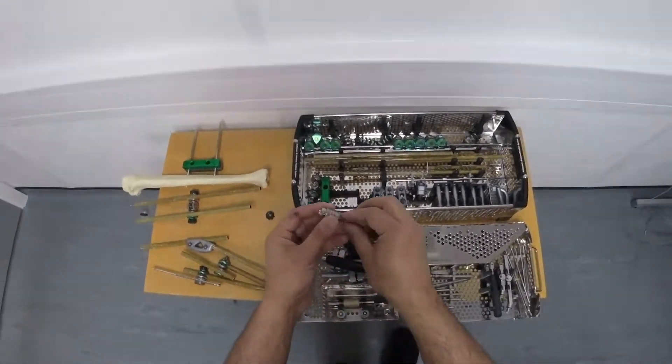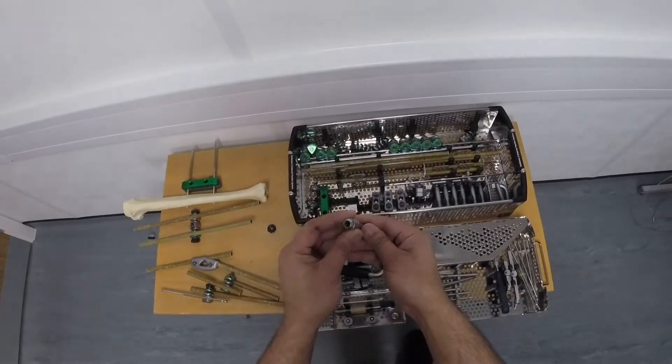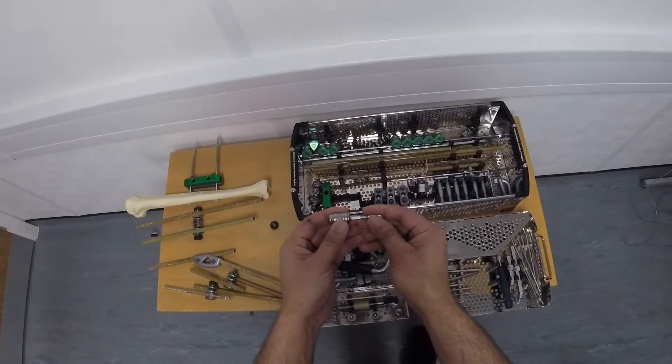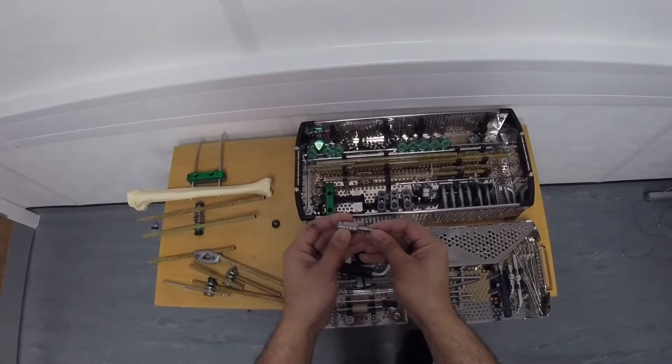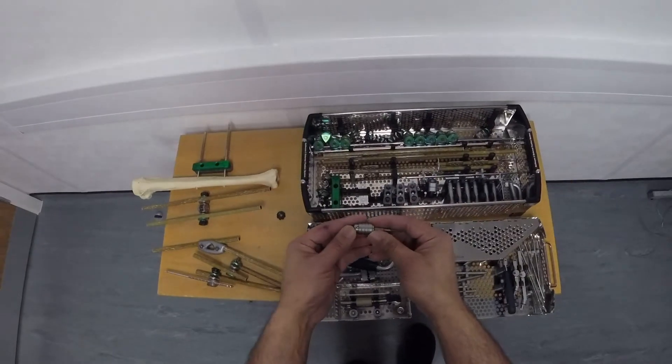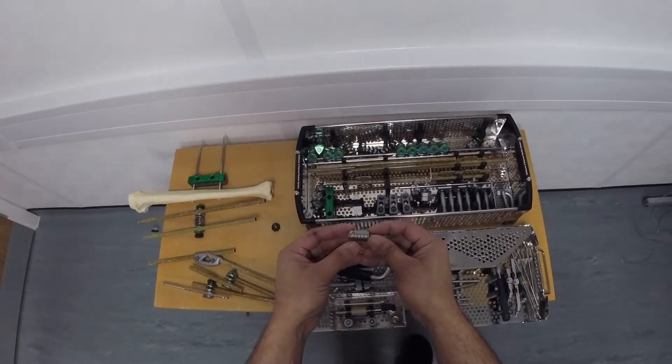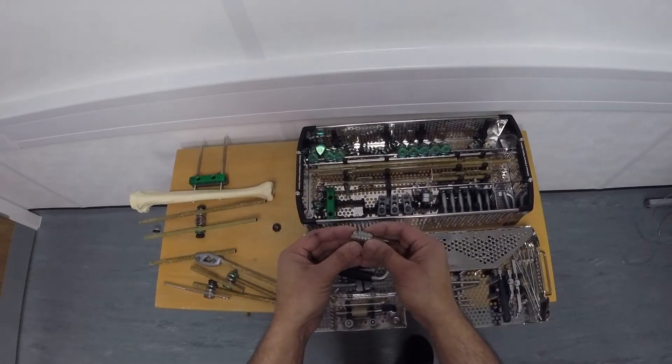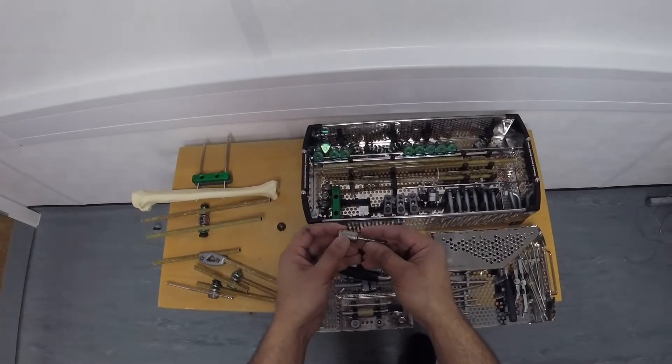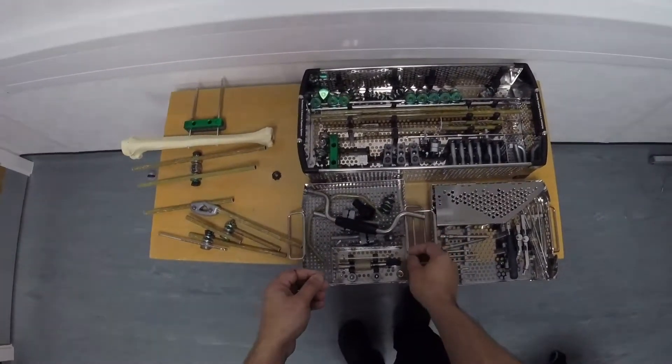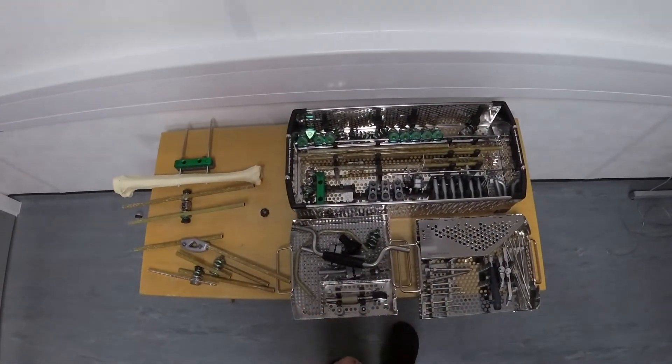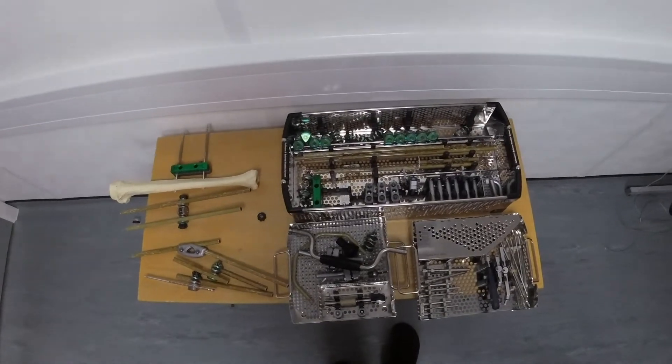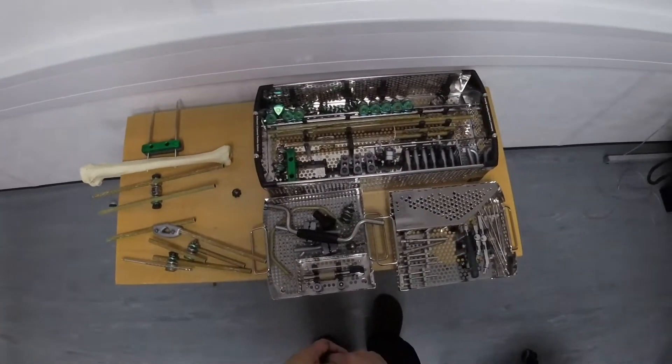These devices are for mounting a pin on power. That's not something that I always recommend. It may save you some time, but ultimately putting pins in on power results in thermal necrosis. And if you watch my other video on this YouTube channel, you'll find out exactly why.